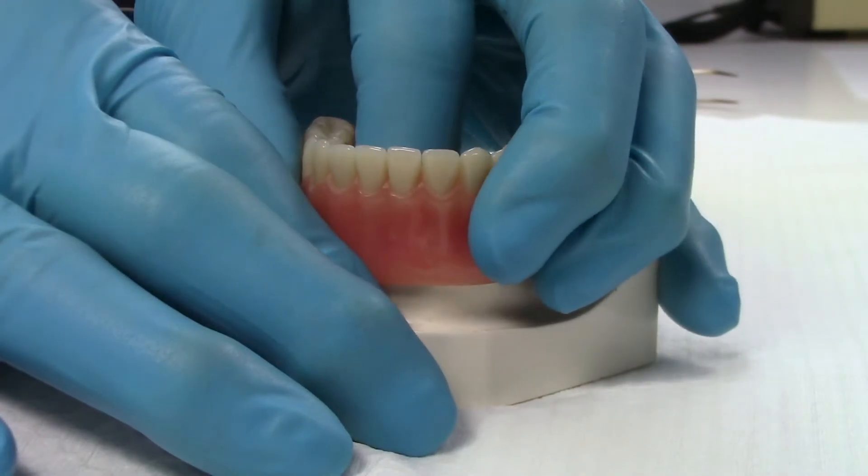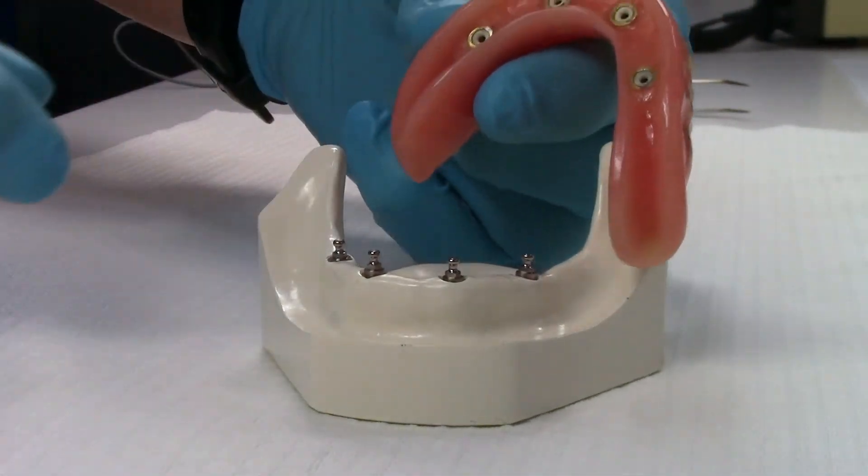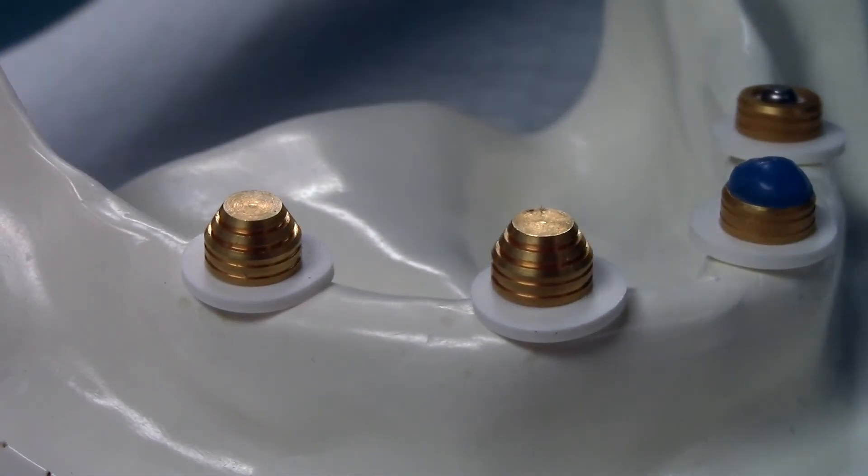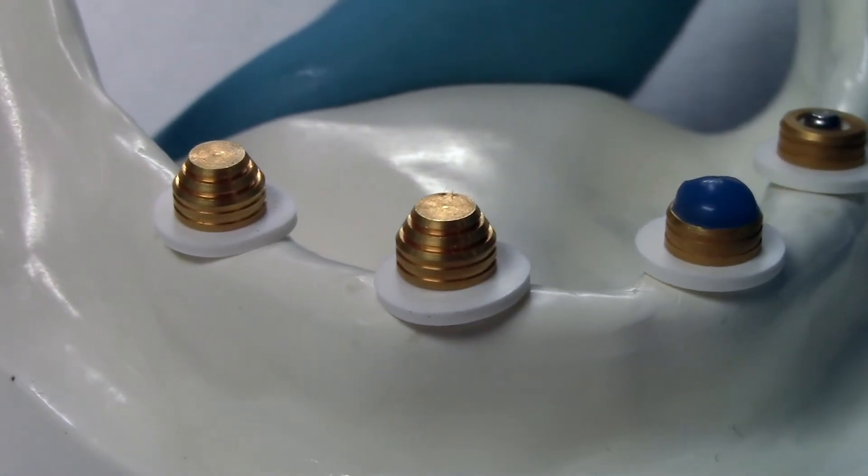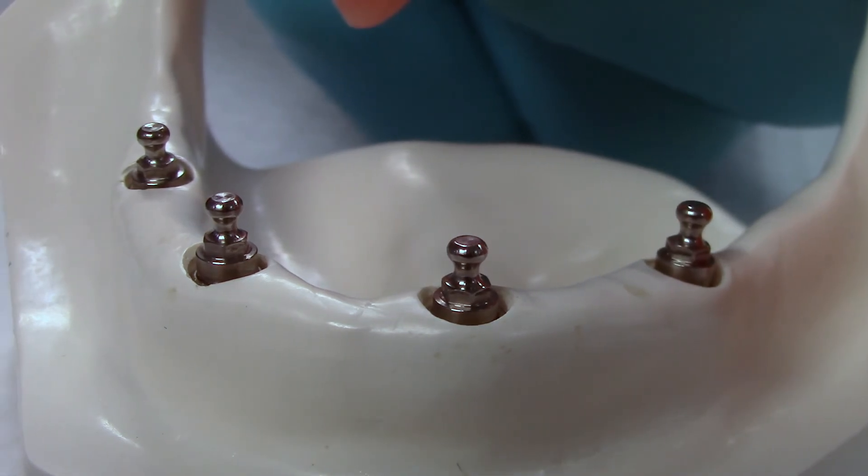This is the ultimate system for patients with poor manual dexterity and doctors who are looking for a more affordable option. The ORA Abutment is the perfect solution to some of the industry's most common problems.